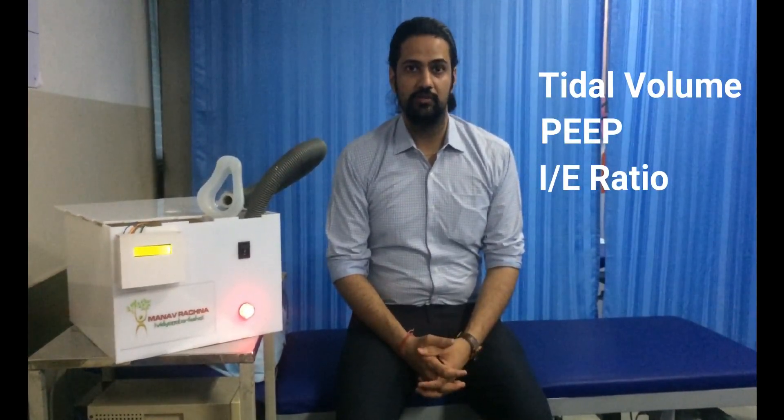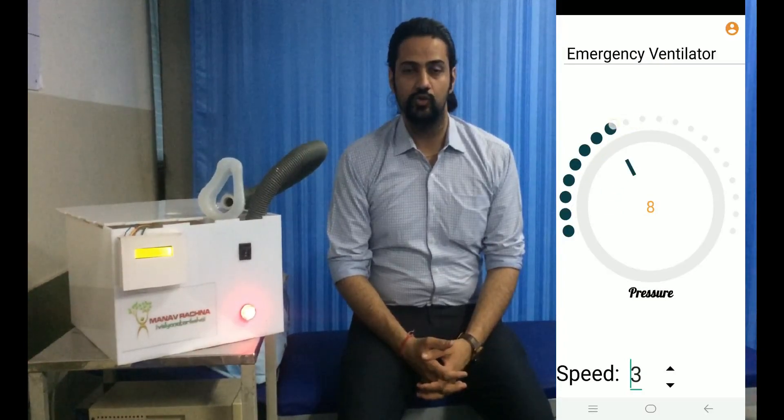The doctor has the option of setting up different parameters like tidal volume, PEEP value, and I:E ratio with the help of a mobile phone application or through the UI panel which is available on the ventilator itself.